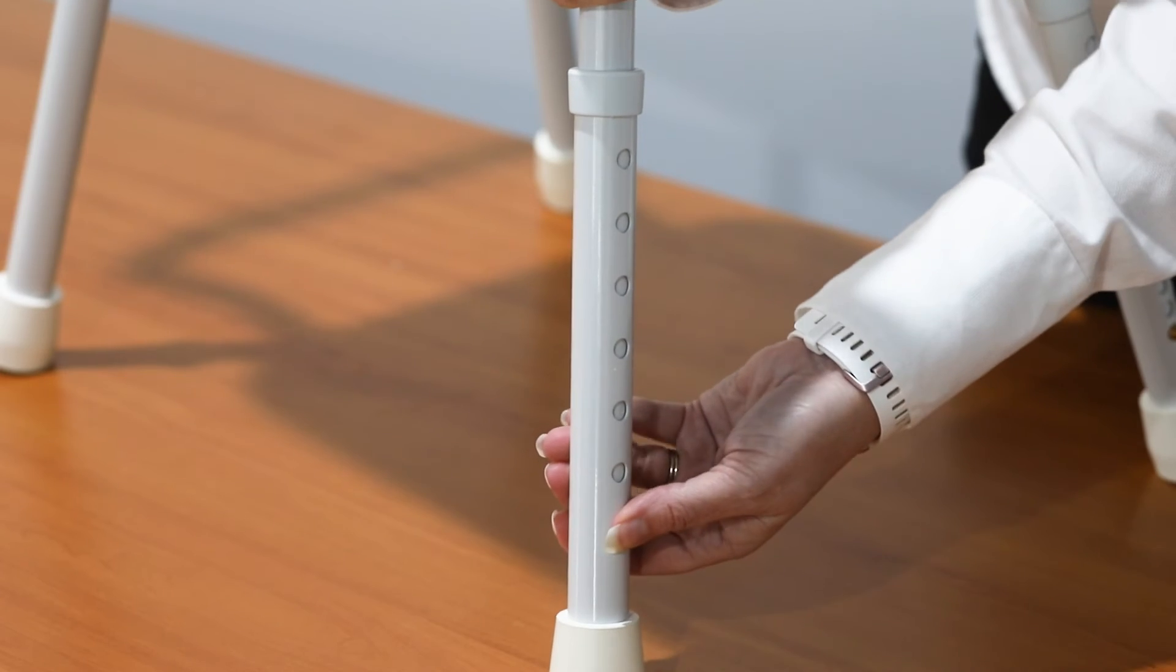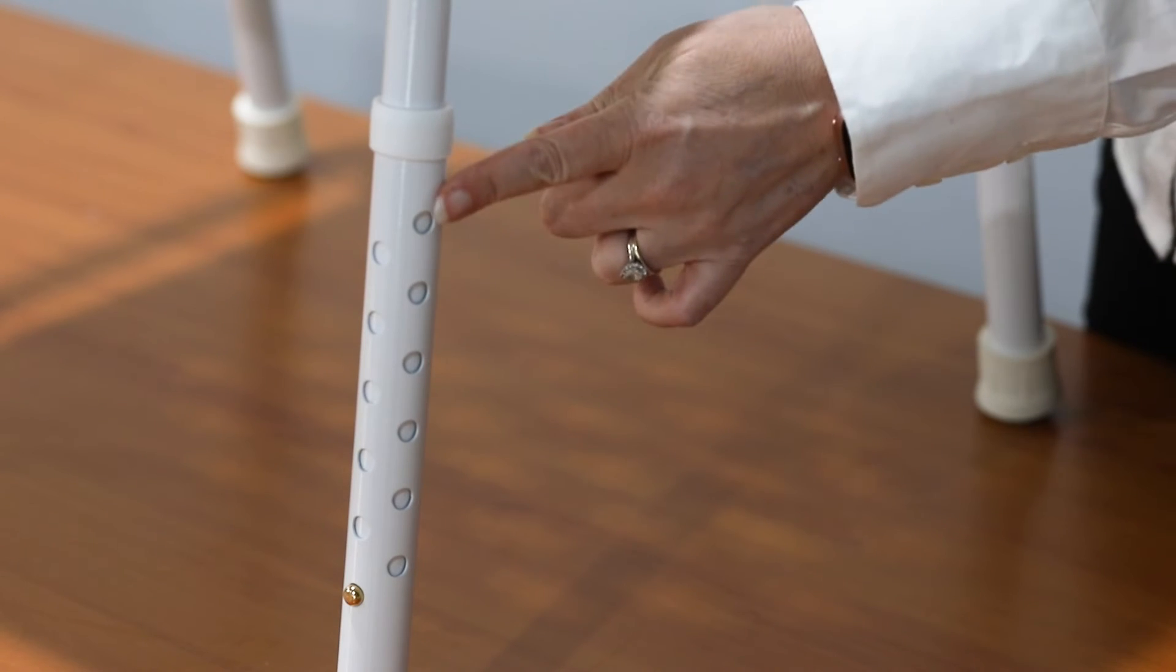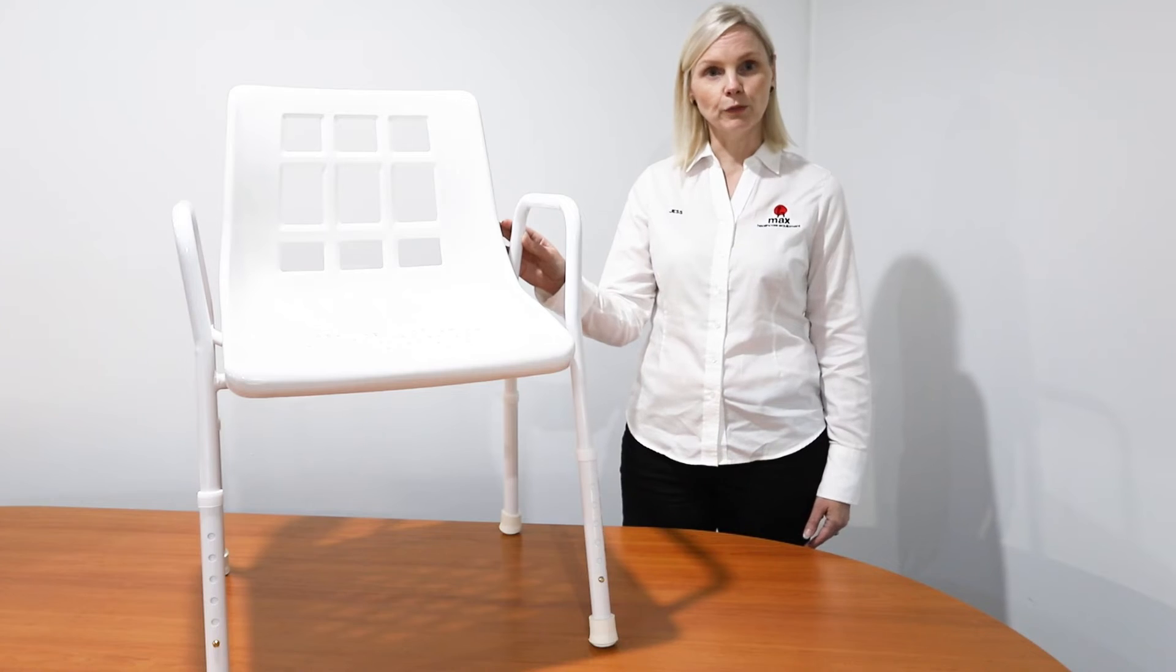It has easy push button leg adjustments and extra adjustments on one of the legs to adapt to uneven bathroom floors.